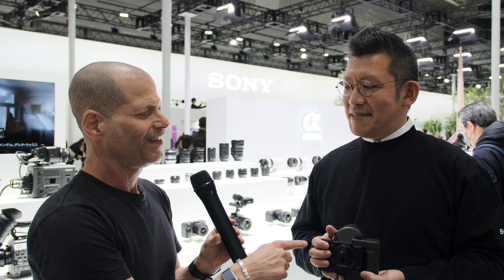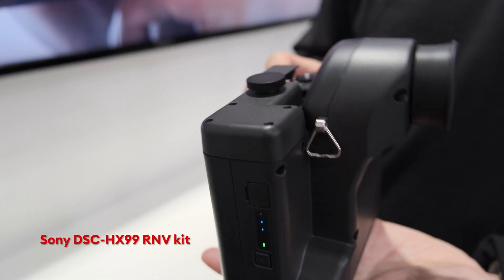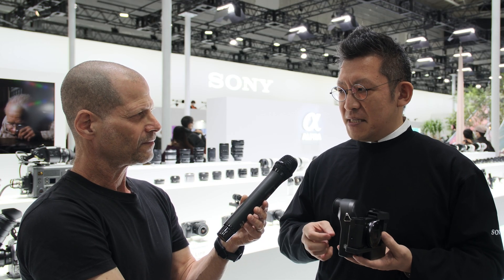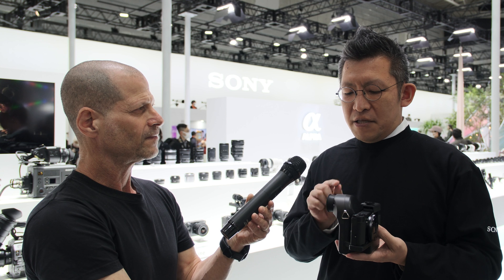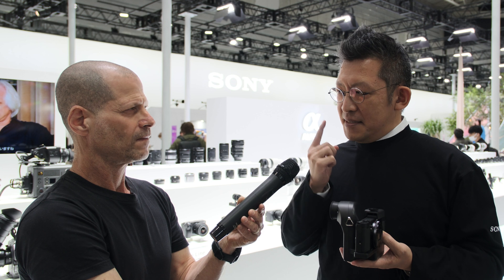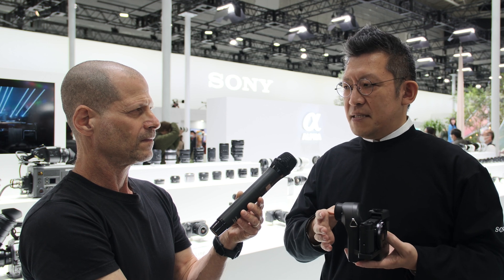What does it mean in practicality? This is a combination of Sony's digital camera and an accessory viewfinder which uses retinal projection technology. Retinal projection is literally projecting an image to the retina directly. It has a laser projector inside and it draws the image directly to the retina. By retinal projection, we can skip the focusing function of the eye — we have a lens here, but it doesn't matter. It provides a clear image directly to the retina.